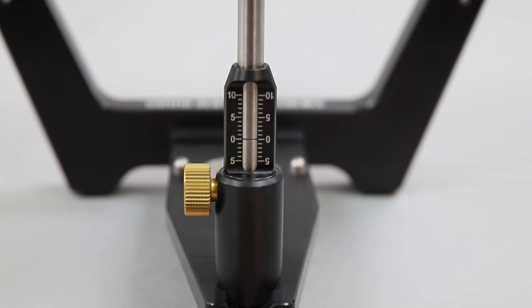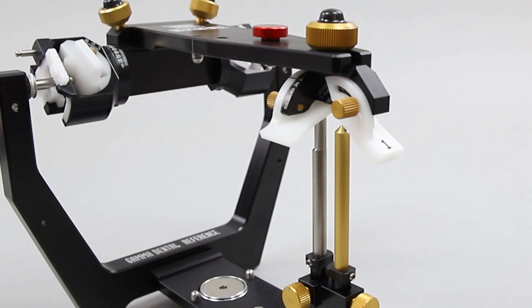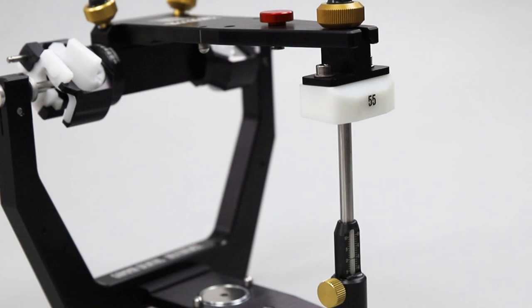Alternative incisal units are optionally available. For example, the reference sequence table units for practical application of the sequential occlusal concept according to Professor Rudolf Slavicek, the individual anterior guidance unit with double pin for application of an individual occlusal guidance concept, or fixed tables with default inclinations of 30, 40, or 55 degrees of anterior inclination.